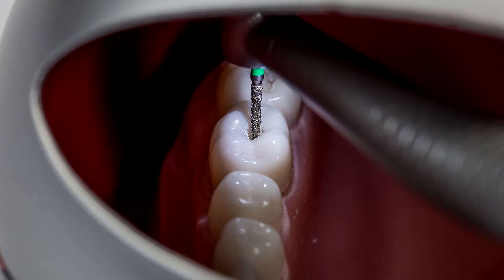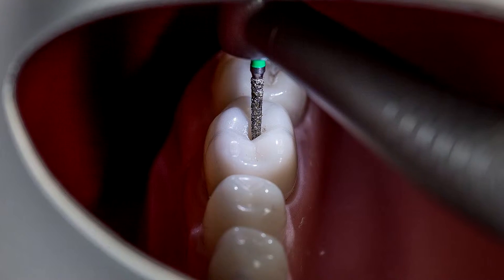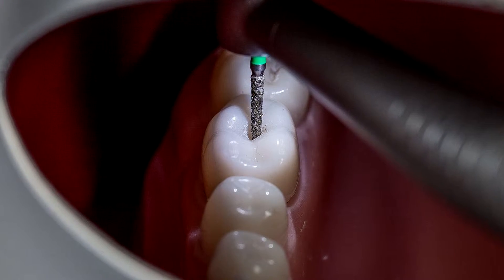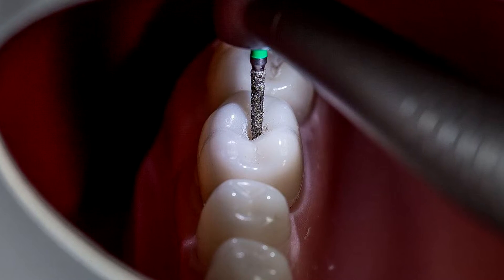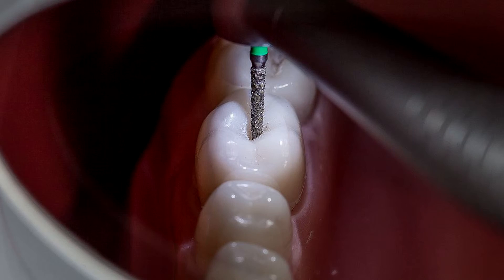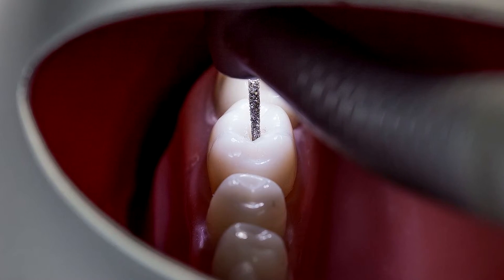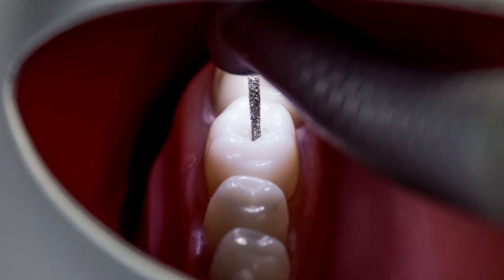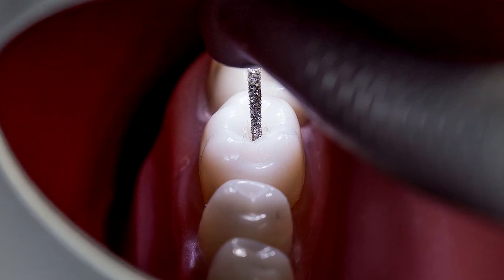The second system is the LED light, and here you can see the change in the color of the light as well as a small reduction in the shadows in the distal area. And now for the W&H LED ring — the area is very strongly and clearly illuminated and there are no longer shadows forming in the distal area.